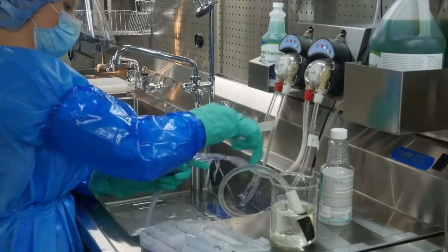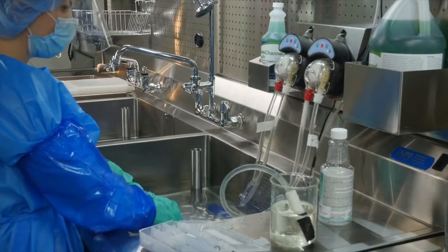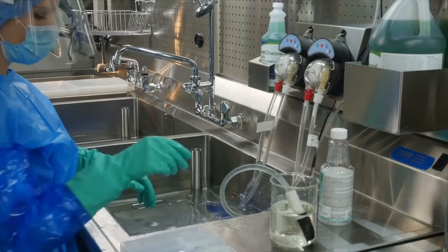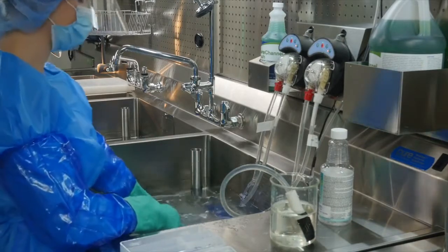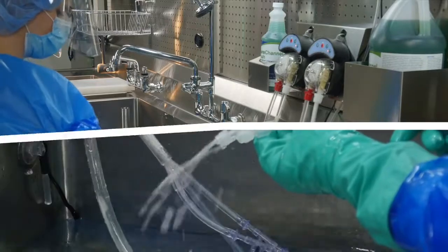You should see disinfectant eject from the valves indicating there are no air bubbles inside and there is full contact with disinfectant. Let the disinfectant sit for its contact time as stated in the IFU. Pro Spray has a 5-minute contact time.